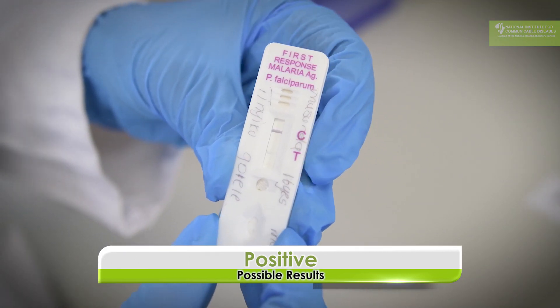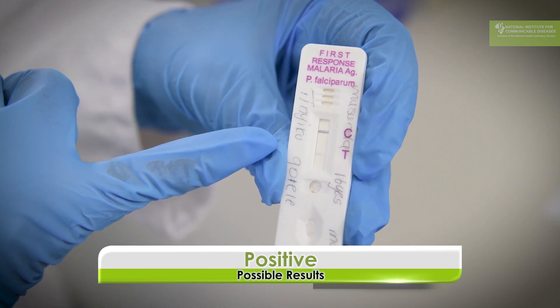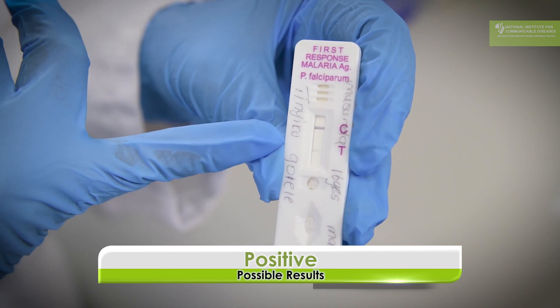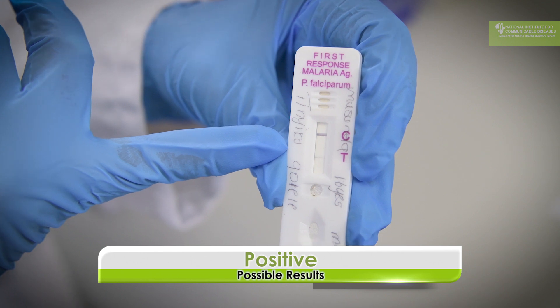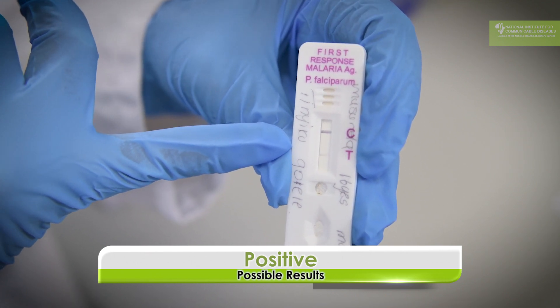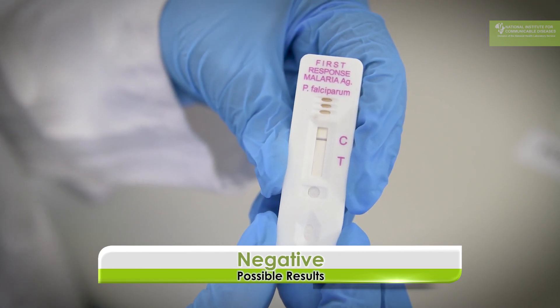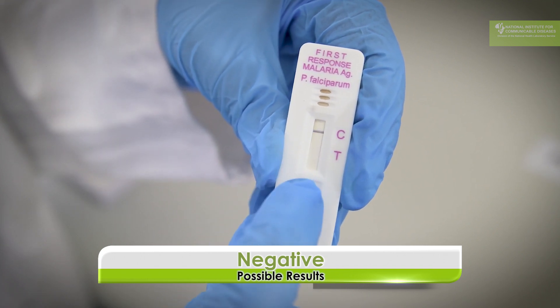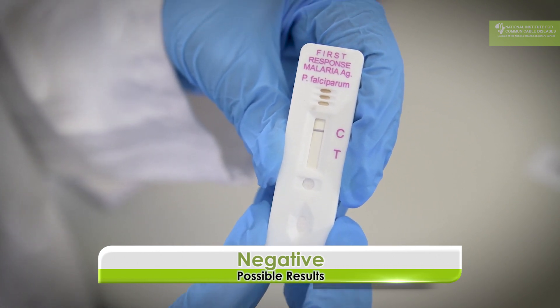This is also a positive result. You can see a very clear control line; however, the test line is very faint. Even if you get a faint test line, you have to call it positive, because anything that appears at the test line indicates a malaria infection. This is a negative result — the only line that has come up is the control line, with nothing at the test line, so this is a negative test.